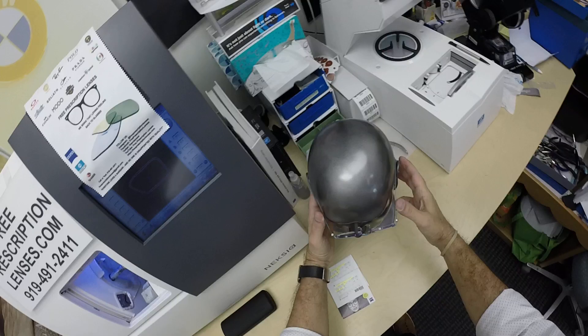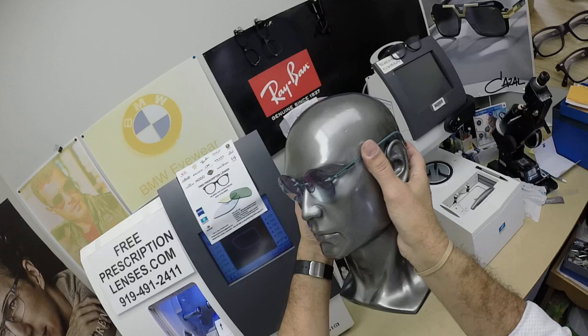Macy requested polished edges. That's two polished edges in one day — I said okay, I'll do it. I need to do a full FAQ video for polished lenses.